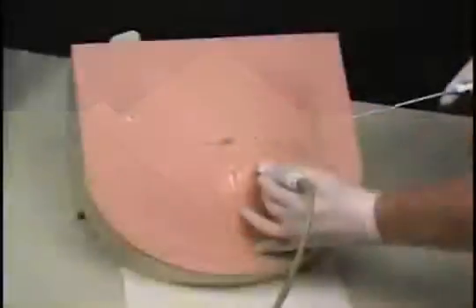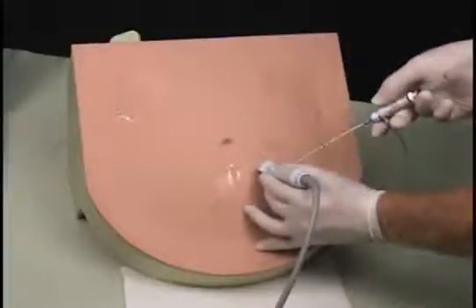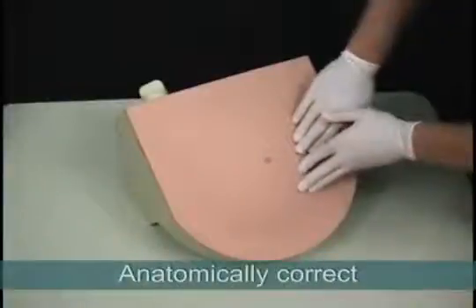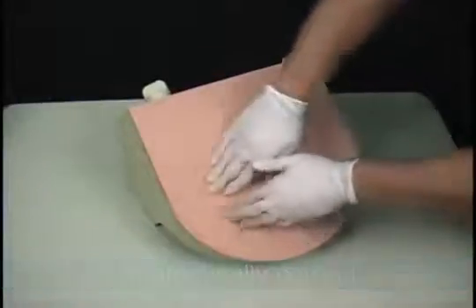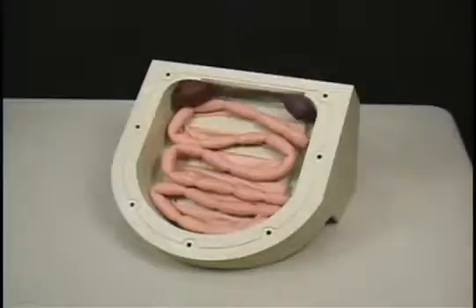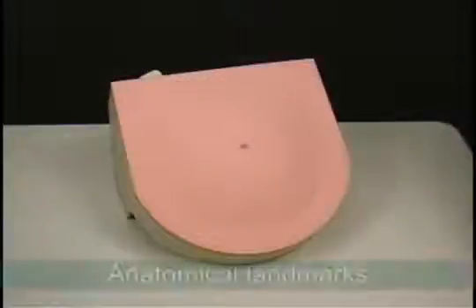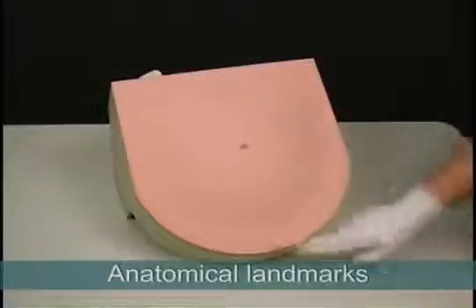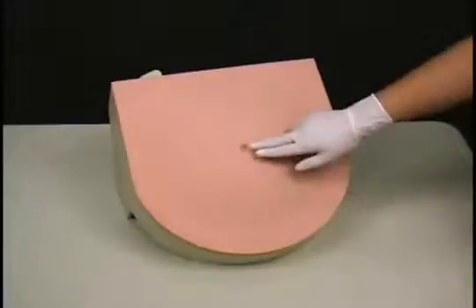The model's anatomy includes superficial epigastric vessels, partial liver and partial spleen, rectus abdominal muscles, and mesentery intestines. The anatomical landmarks include the pubic symphysis, iliac crest, and umbilicus.